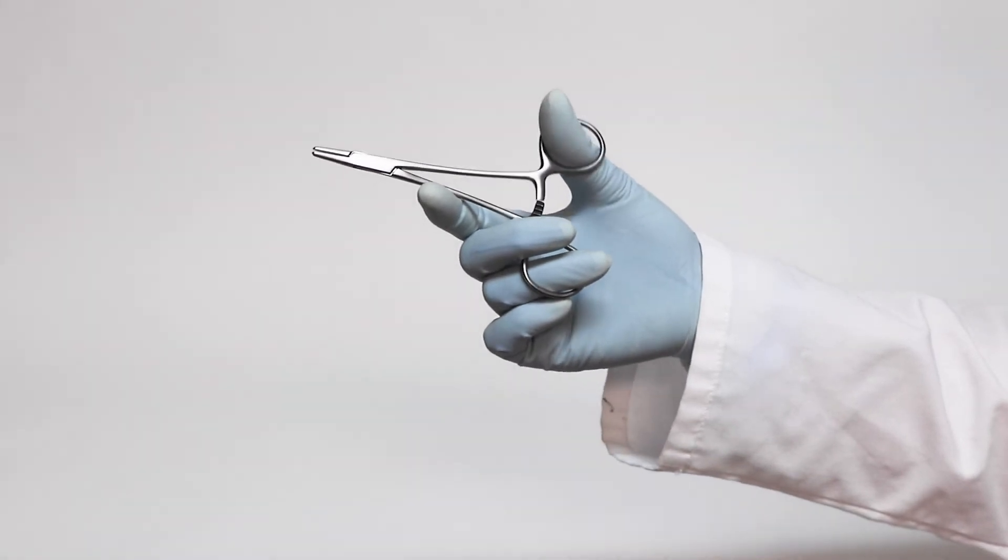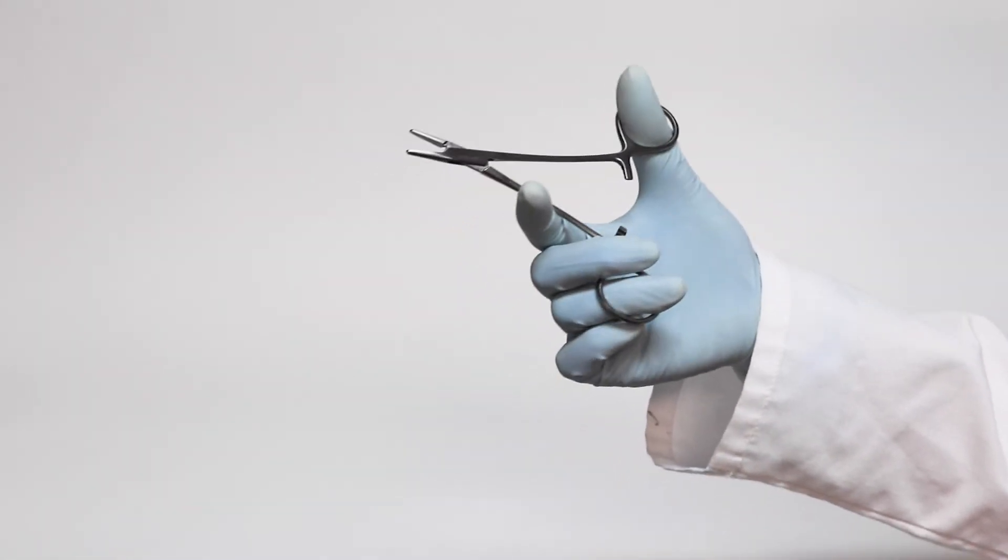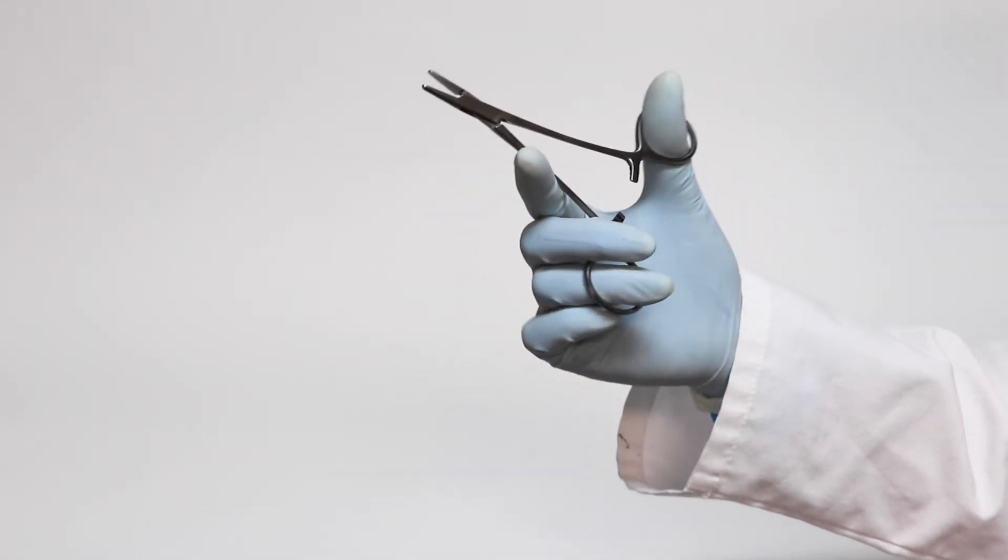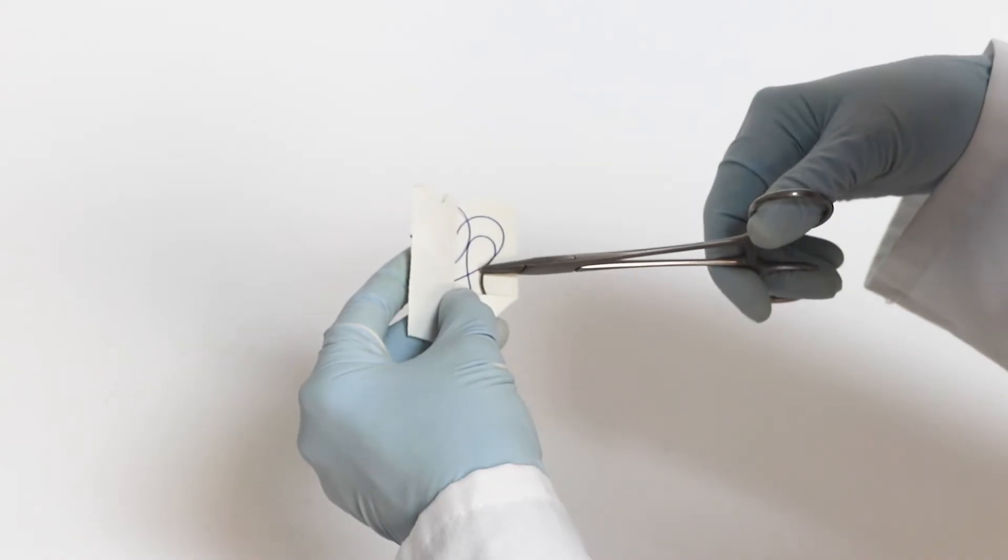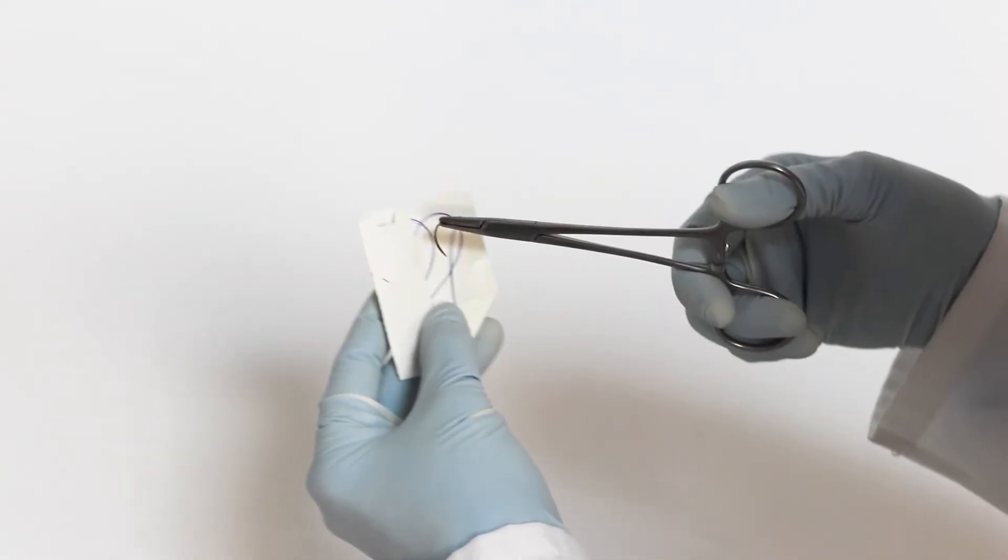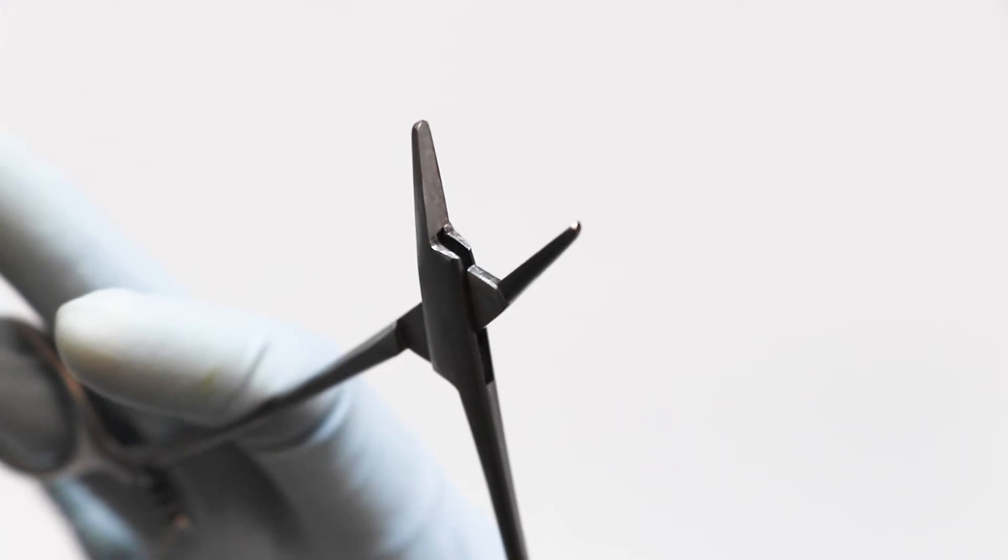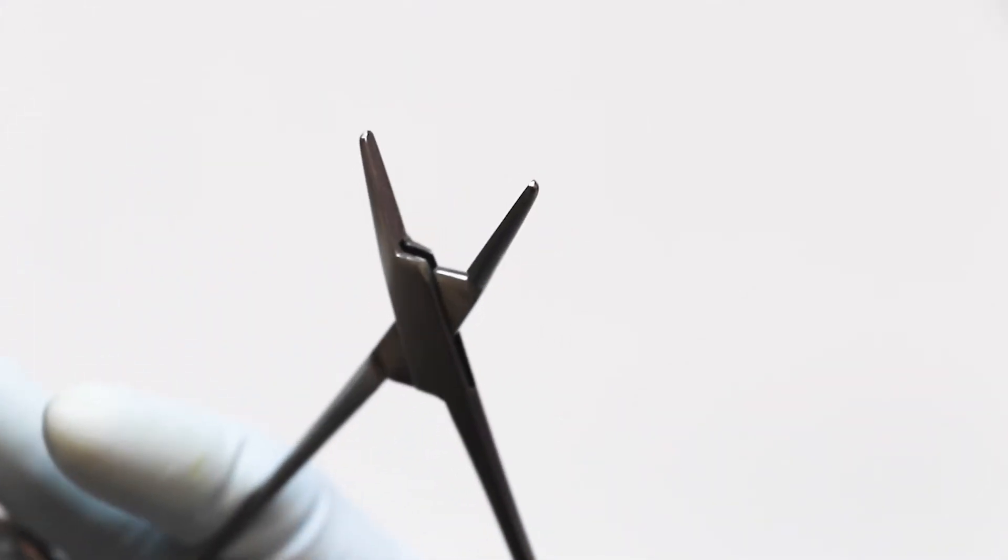Our Webster needle holders are designed for use with small needles and fine suture material, which is common in plastic surgery or subcutaneous procedures. The lightweight instrument provides the surgeon with greater control and less hand fatigue. The serrated jaws hold the needle tightly.